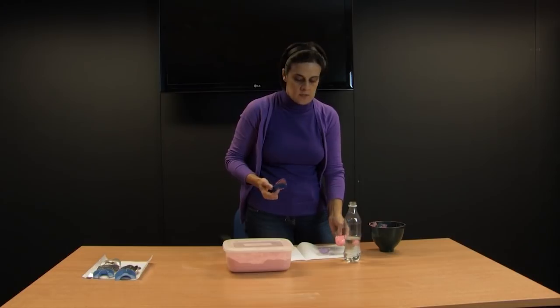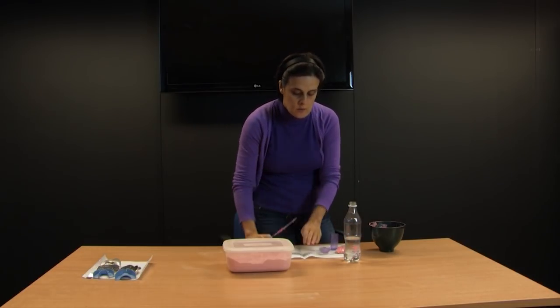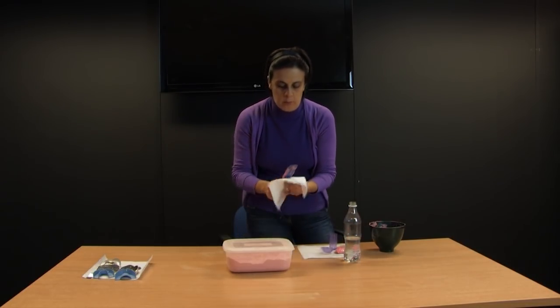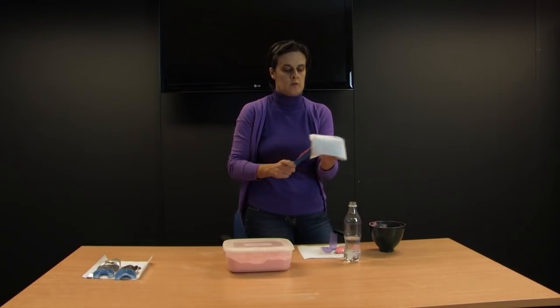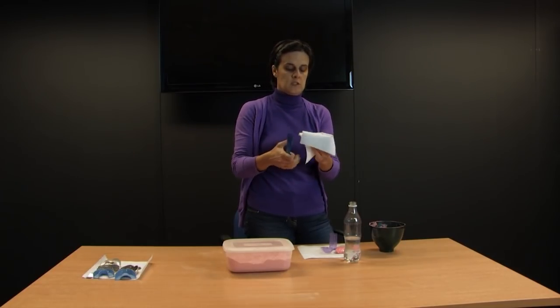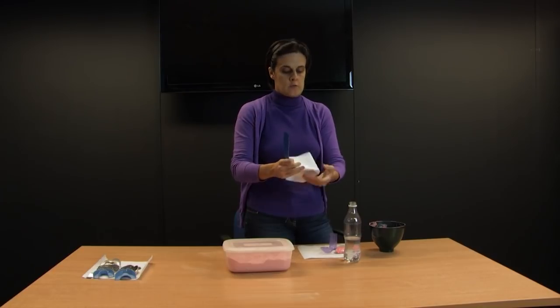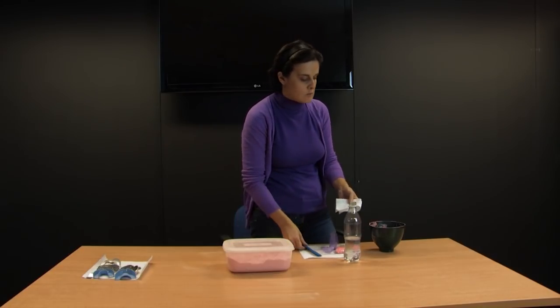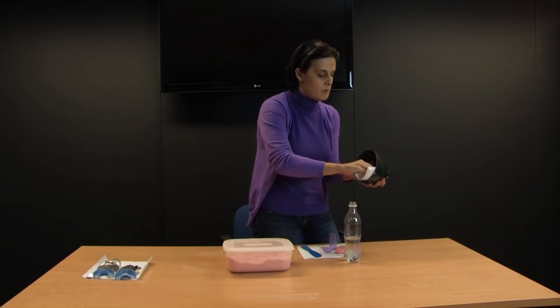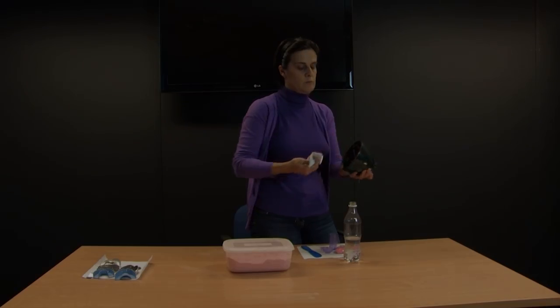In the exam, what is required of you is to wipe your spatula with a tissue, and of course in the surgery you also have to wipe the bowl.